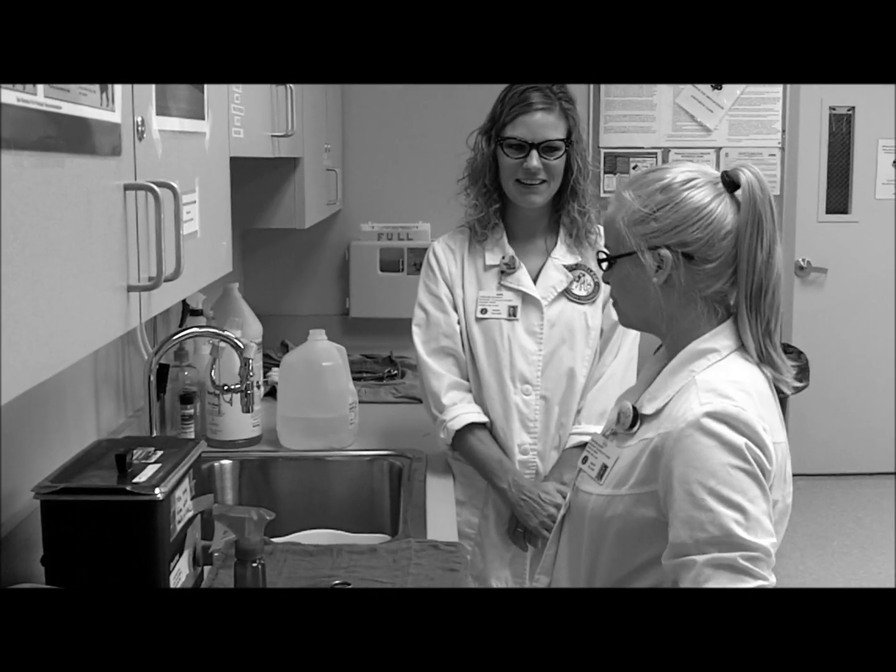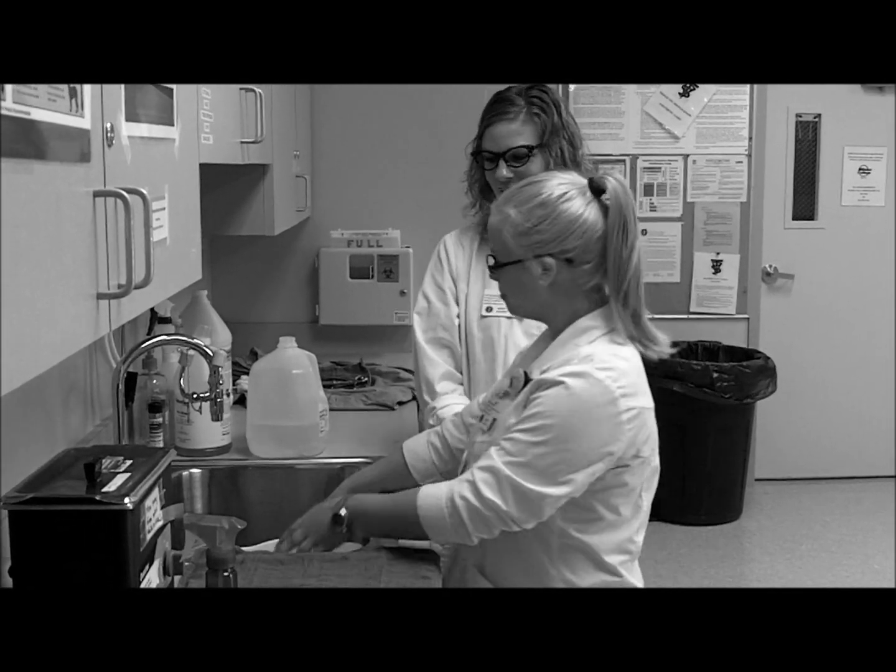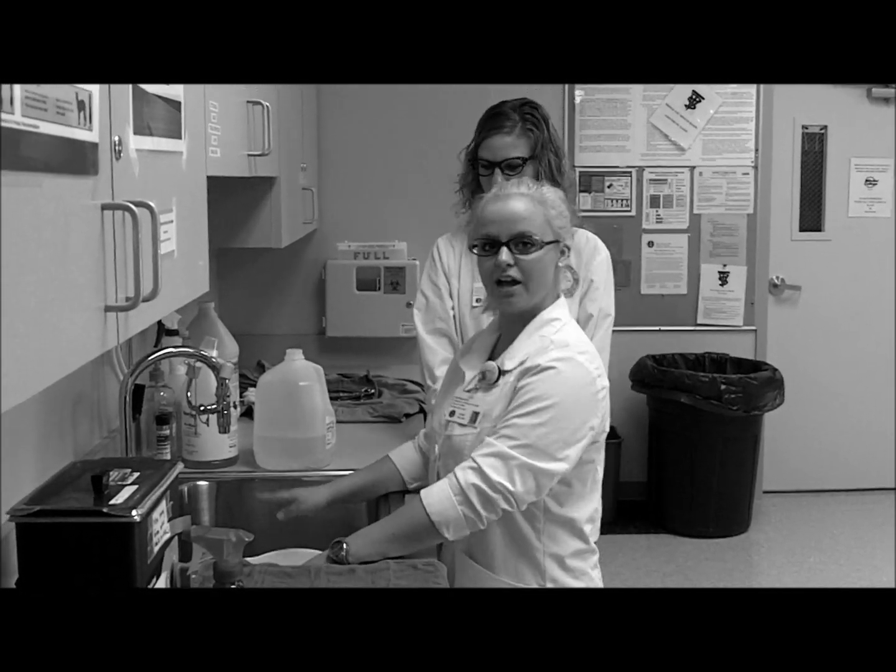Golly, Christina, you've taught me so much today. Let's just make sure I got this straight. First, we start with the tub with the distilled water and the splash of the wet wash.